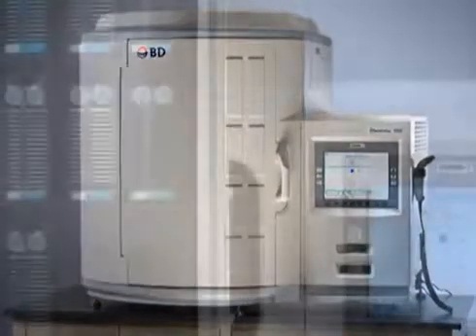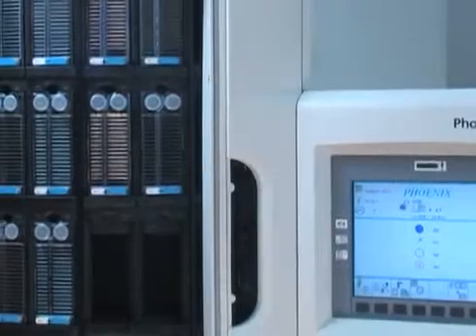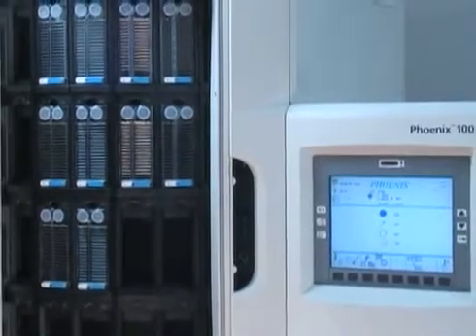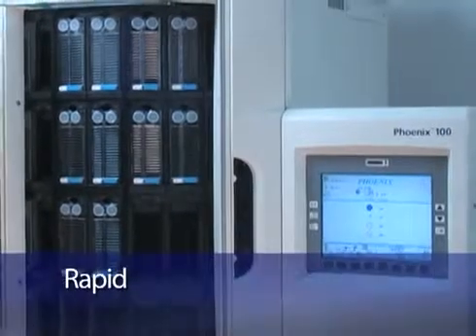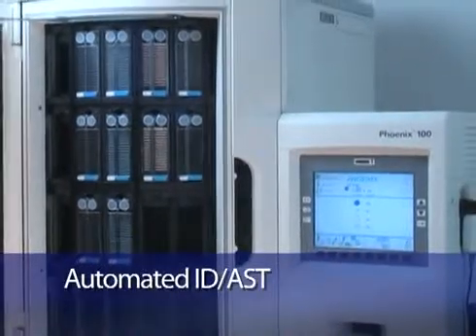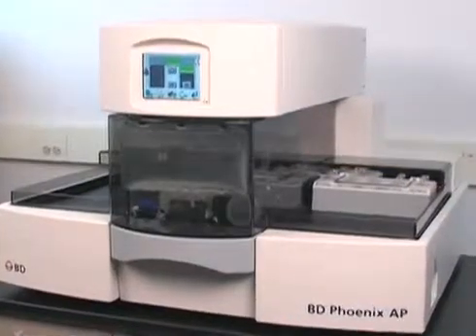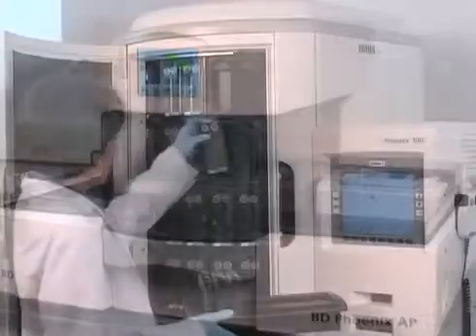Manufactured by Becton Dickinson, a worldwide leader in microbiology, the BD Phoenix 100 automated microbiology system is a rapid, self-contained automated identification and susceptibility test for clinically relevant bacteria. In combination with the BD Phoenix AP, the Phoenix system workflow is adaptable to both large and small volume laboratories.